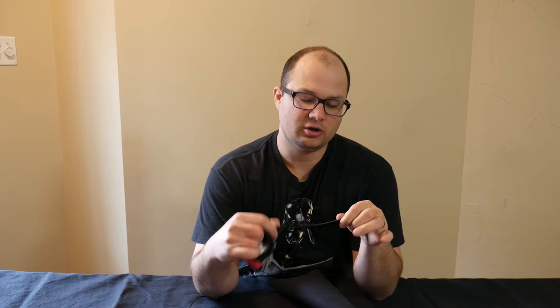Then I went and took some medical training and found out why the RAT's tourniquet is not that great. The first thing is that you need about two inches of band width in order to get good compression. As you'll notice, this thing looks like about a half inch of width in the band — and I'll show you why that's a problem.